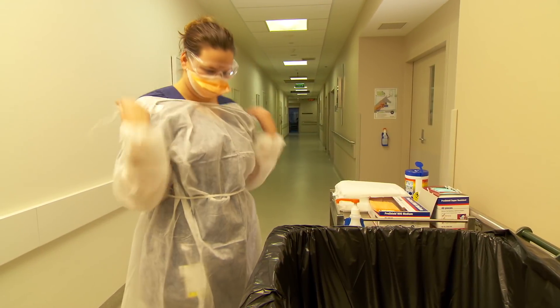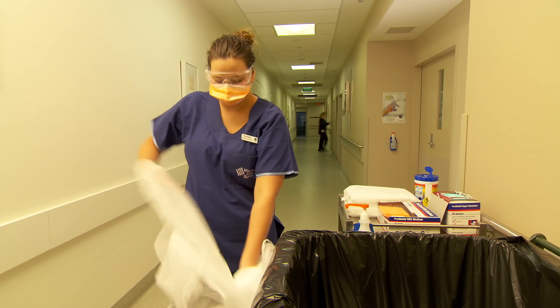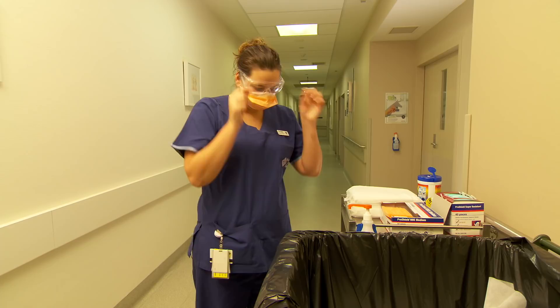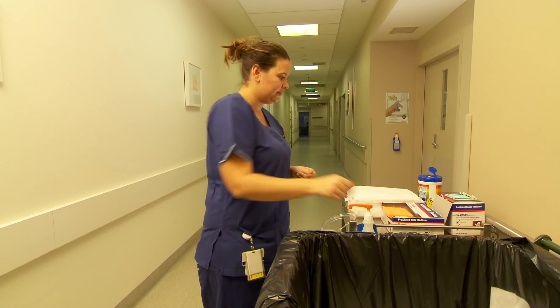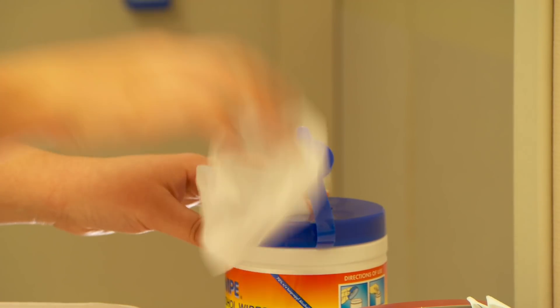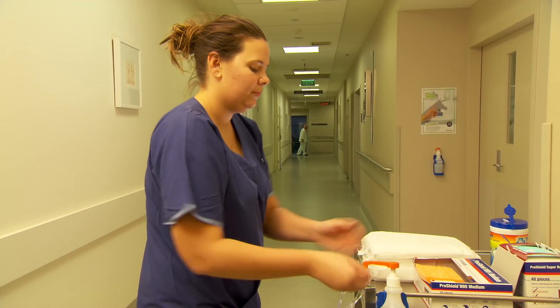Tenille removes her gown outside the room. As the gown is not blood-stained, it can be disposed of in the general waste. Hand hygiene is again performed. The protective eyewear is now removed, followed by the mask. As the protective eyewear can be used again, it is important that they are wiped down with the alcohol-impregnated cleaning wipes before returning them for use. Hand hygiene is again performed.